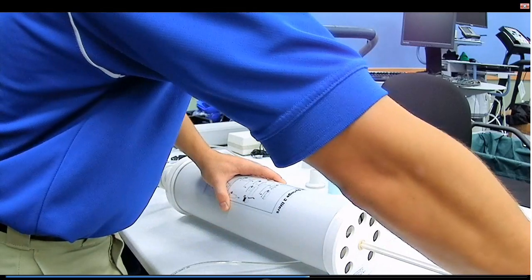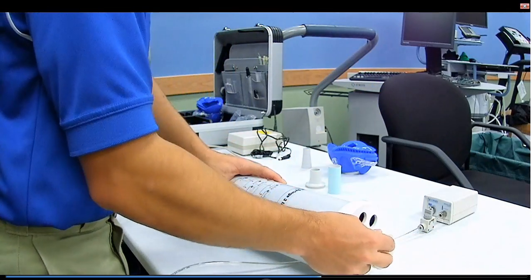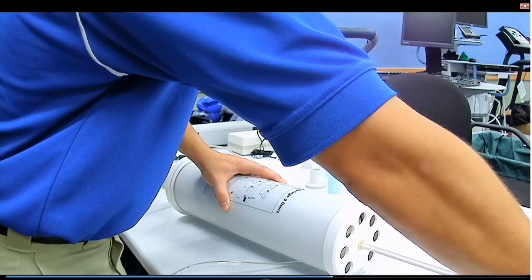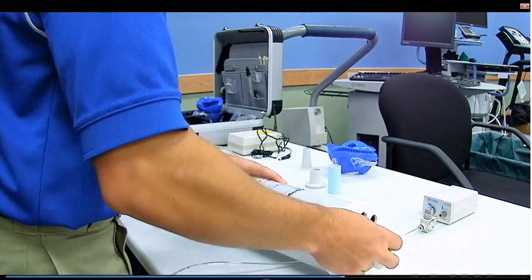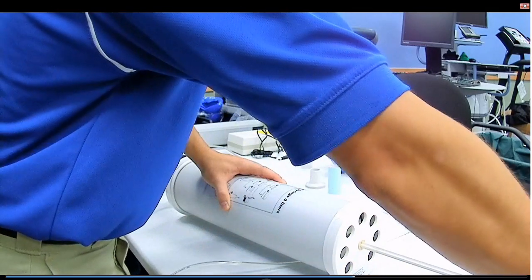After you've done this a few times, it's going to make that indicator sound, show you a complete screen that the calibration is done. Then you can just go ahead and hit OK.